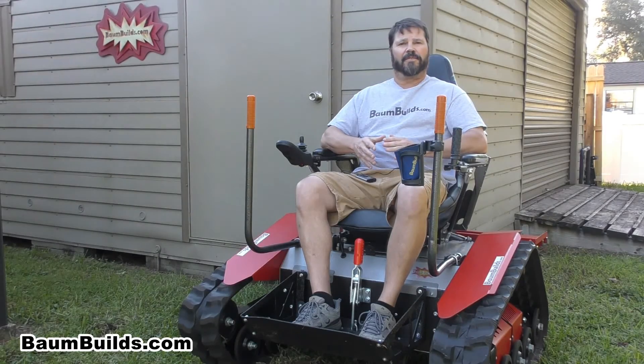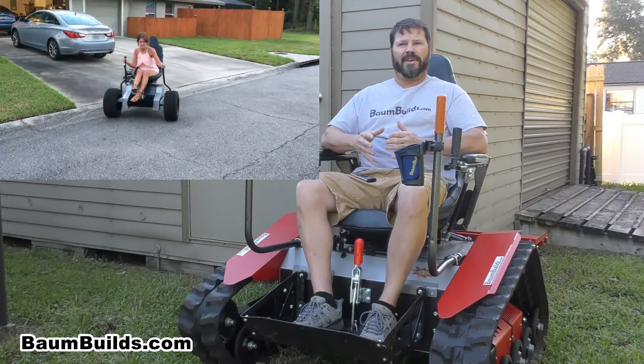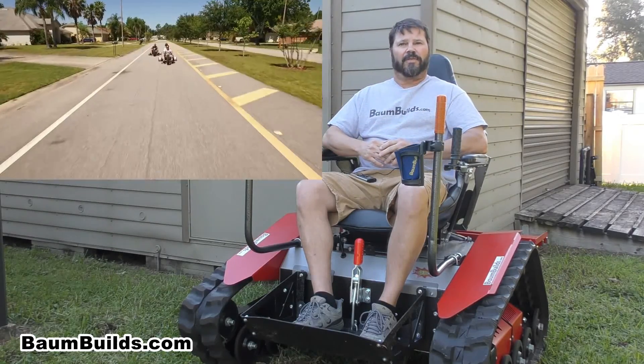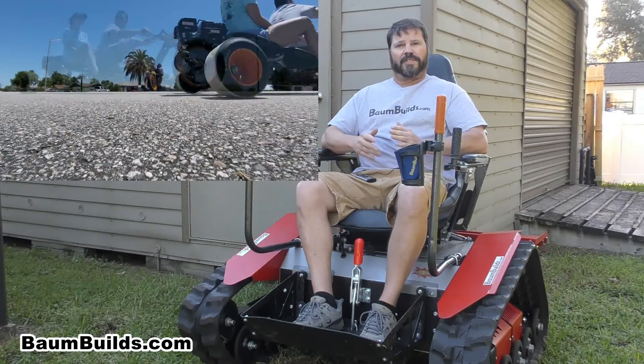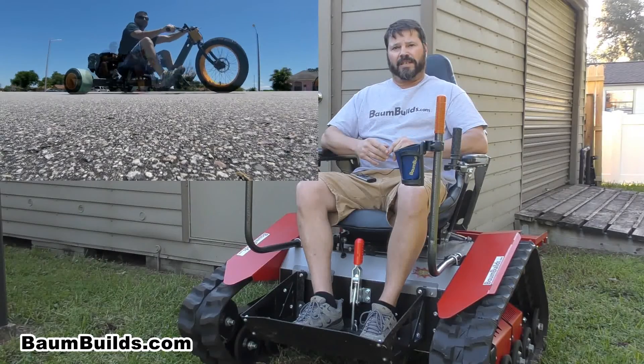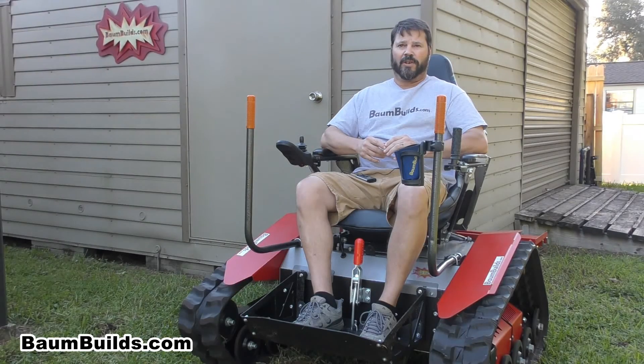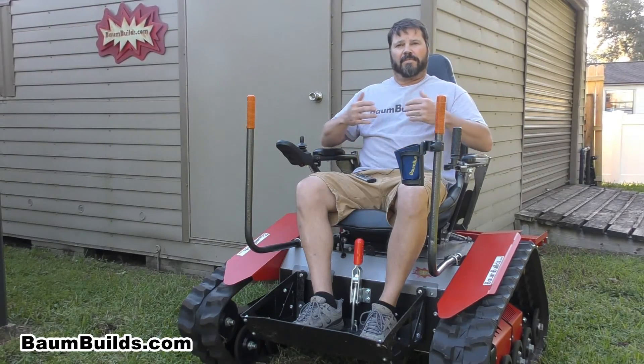However, these vehicles weren't designed for that purpose. For those of you who have seen my inventions in the past, you know that my vehicles are more fun than practical and my videos often use a professional narrator to create sort of a funny infomercial. Well, today I wanted to talk to you directly because I'm particularly proud of this build. Introducing the Mobility Assist Vehicle, or as I like to call it, the MAV.